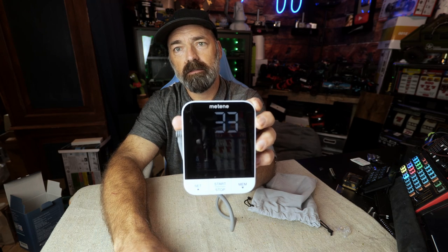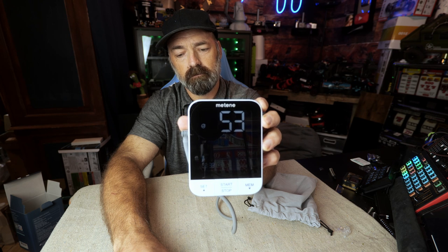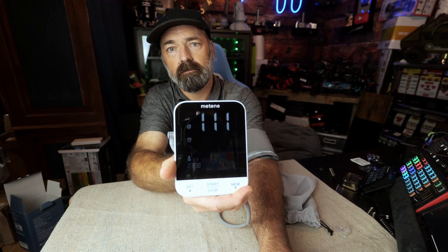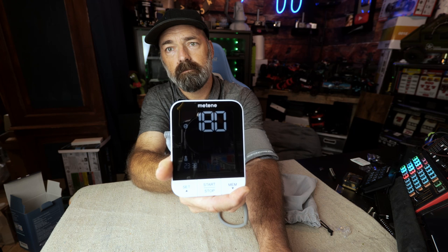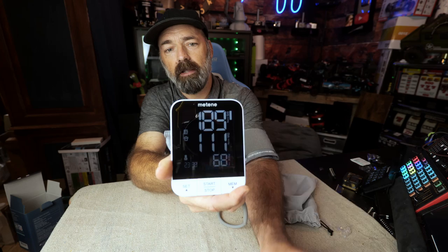Here we go — I'll try to point this to where you can see it. I'm sure it's probably going to read a little differently because I am moving and talking, and I'm not in the exact right position since I'm using my arm to hold up the device.